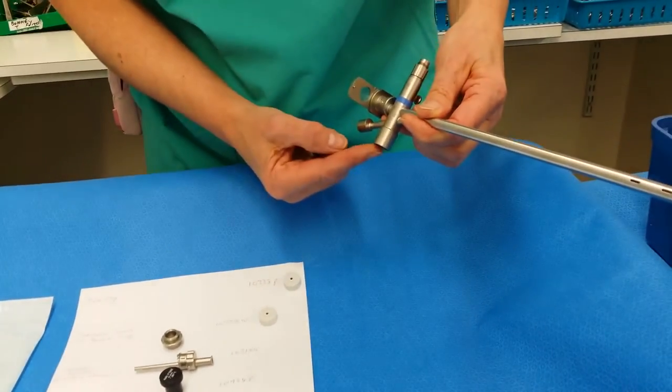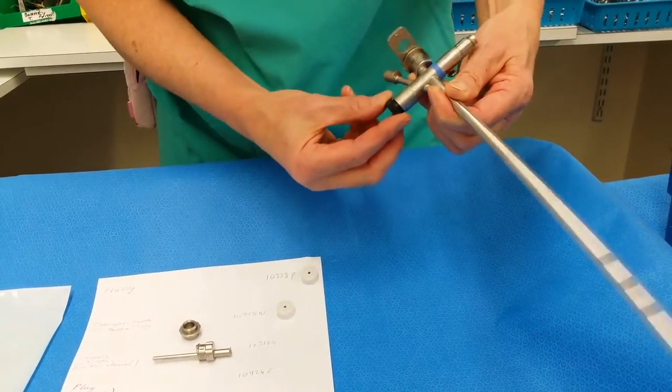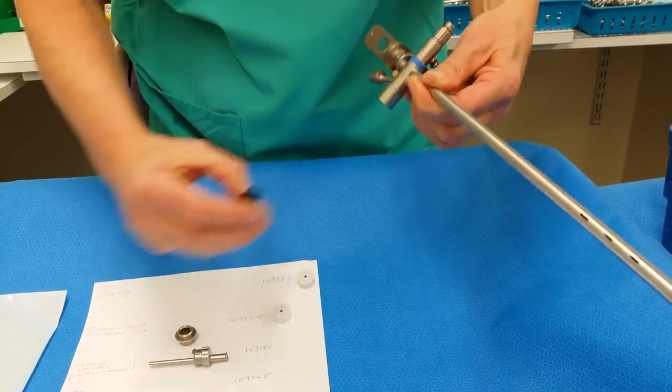This is the connection that goes to the ventilator. For that, if you want to plug it for a minute, you've got the black plug.